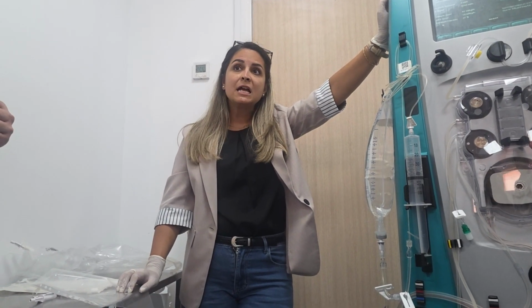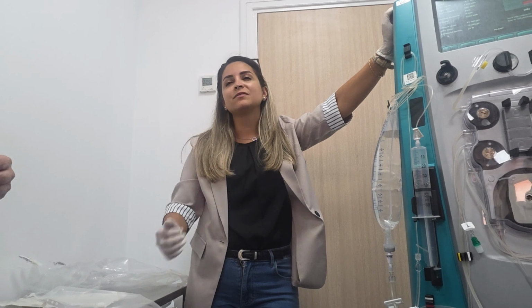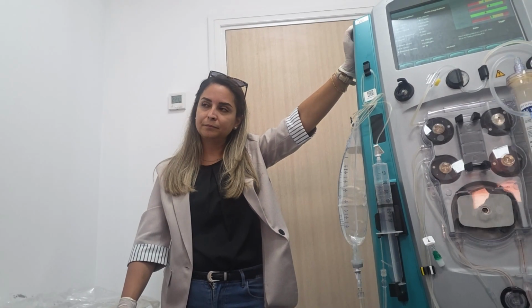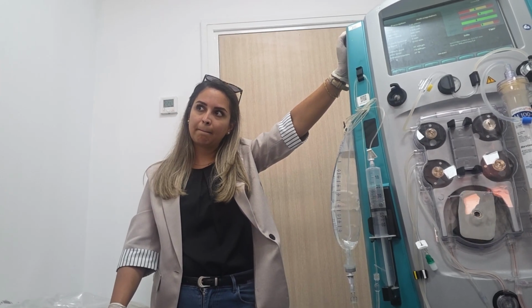Why are they using gluconate there? For pediatrics, because it's less concentrated, there is lesser volume, so the flow rate is very low. But for adults, no, we need a more concentrated one. So we will try to check on the calcium chloride availability that we have, because if at all you need to start it urgently, maybe we can get it from there.